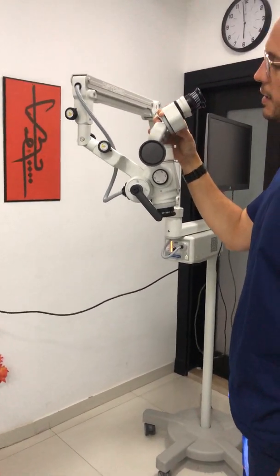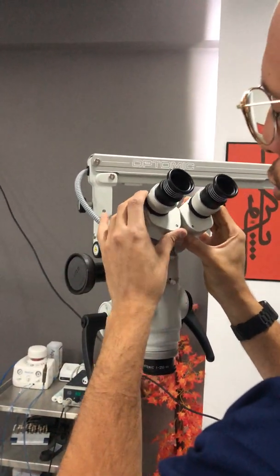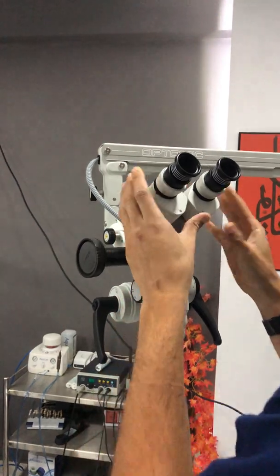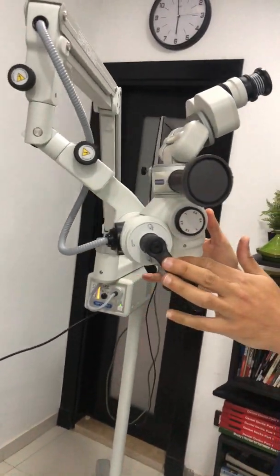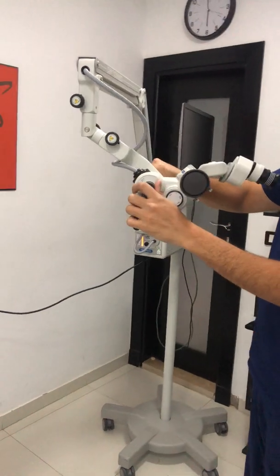However, there are a couple of negative sides. First, the IPD control is really a manual control — you control it with both hands. It really shouldn't be manual on this line of microscope.